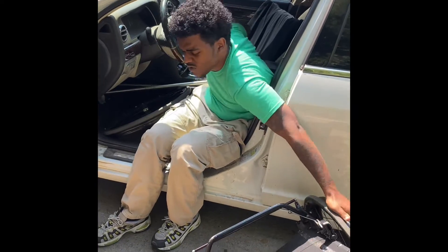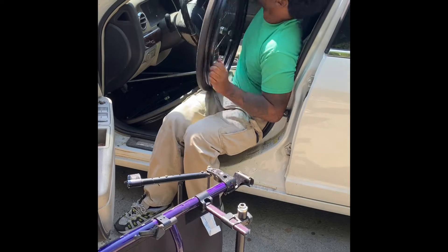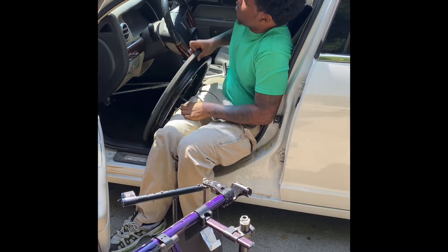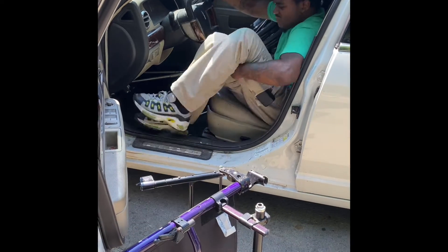Just keep moving — you're running late for time, you're just trying to hurry up, it's cold out. I try to get everything off of the chair before I'm actually all the way in the car. So now you'll see me pop my legs in and over.